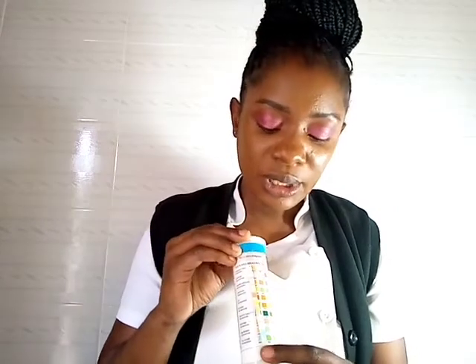When you dip the strip, the colors on the strip are equivalent to the colors on the bottle. Any abnormalities in the colors on the strip will correspond to the abnormalities listed for each parameter — for example, proteins. You move your strip and if you find any abnormality for a certain parameter you are checking, you match accordingly.